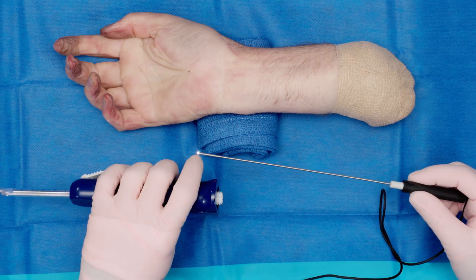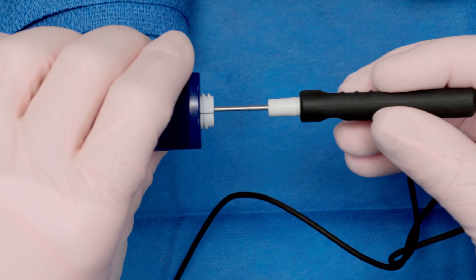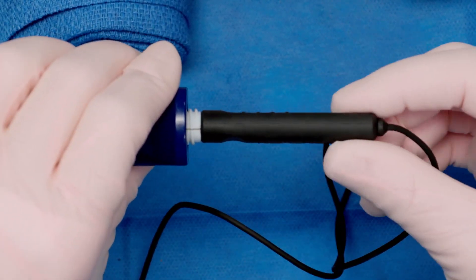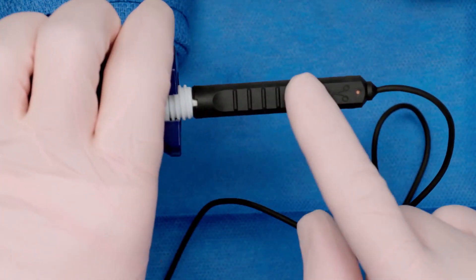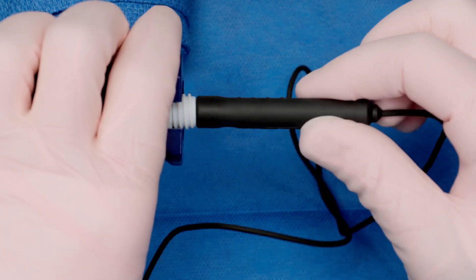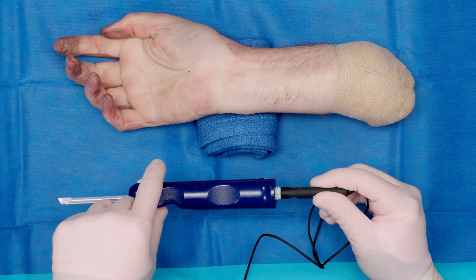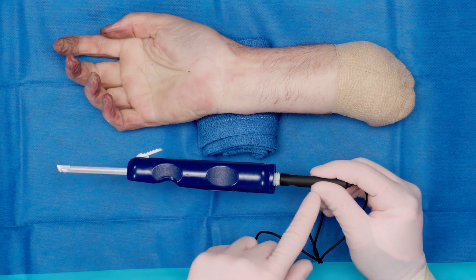To put the device together, you have the centerline handpiece and the nanoneedle. You place the nanoneedle into the end of the centerline handpiece and you'll feel it click in. The striations on here would be facing up or north, but you can move this 360 degrees around to have different views of the camera. This is the view with the blade to release the carpal tunnel, with the handpiece attached to the nanoneedle.